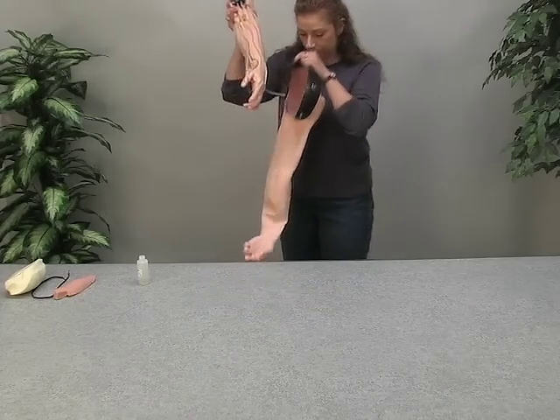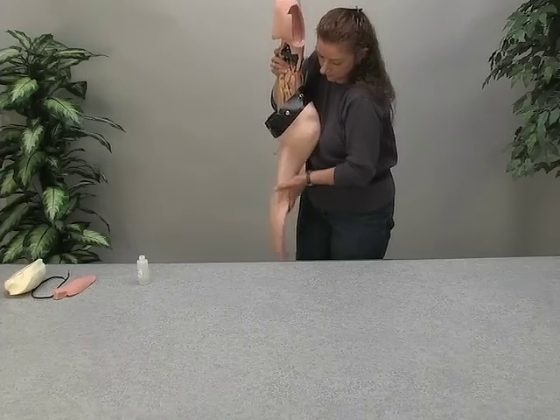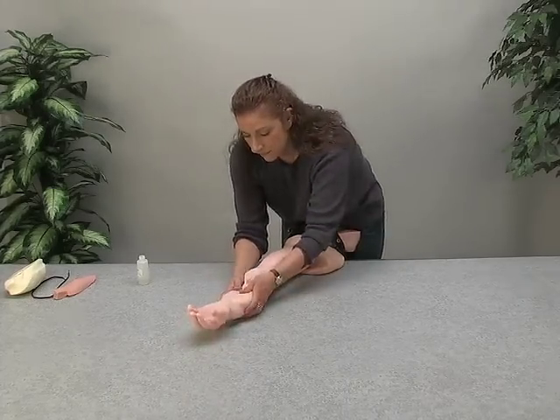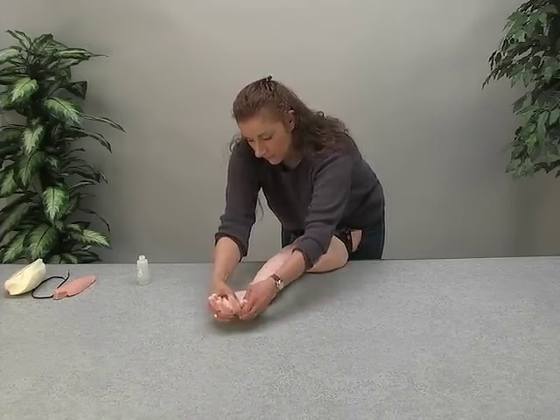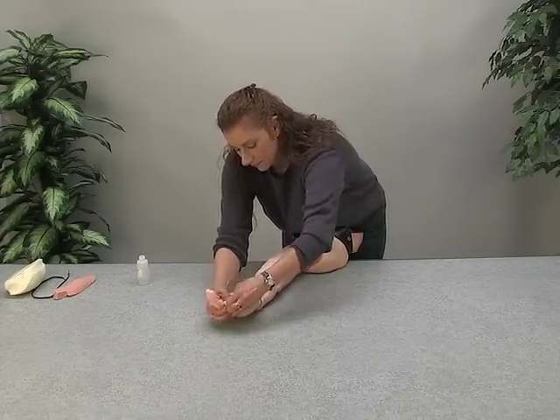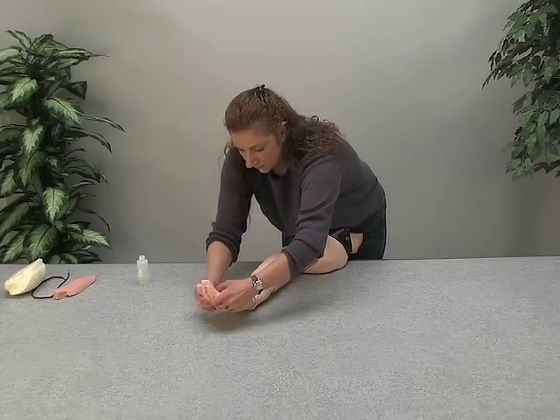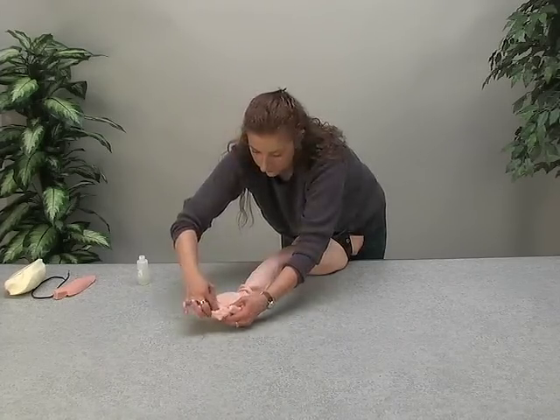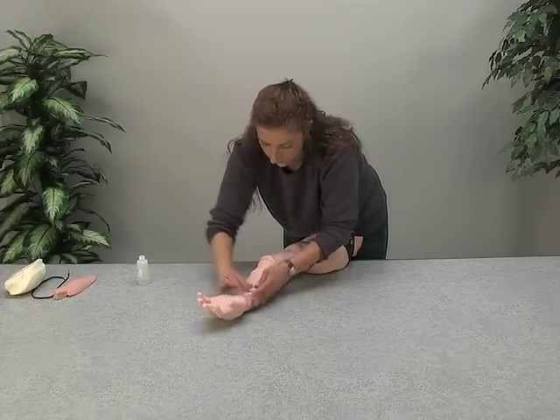Grasping the skin with one hand, gently slide the arm into the skin until the fingers approach the finger holes. It is important that the hand and shoulder are aligned properly and the veins have remained inside the vein channels. Carefully work the fingers into the proper finger holes. If air has been trapped between the skin and hand, work it out gently.